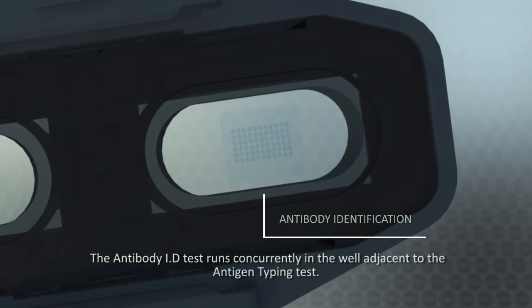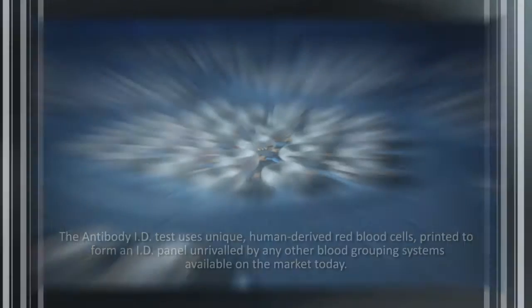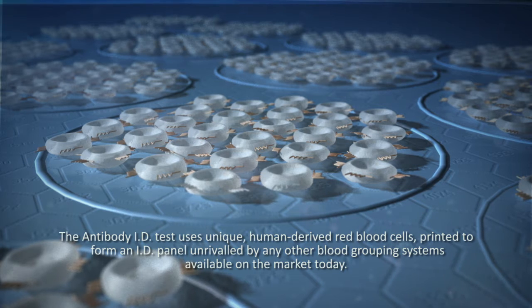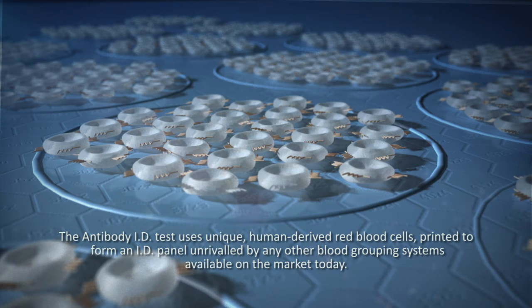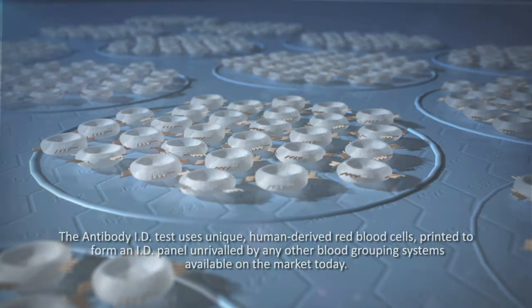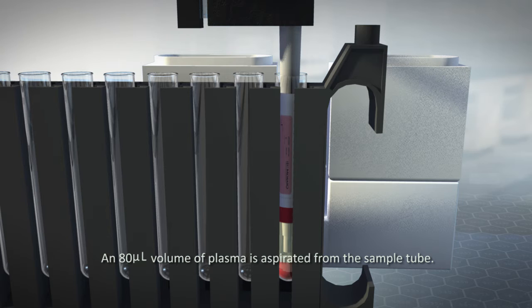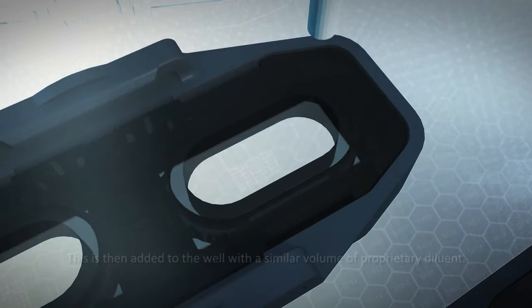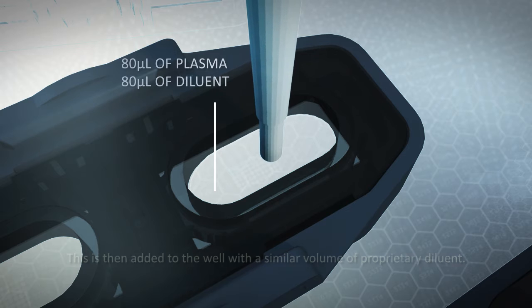The antibody ID test runs concurrently in the well, adjacent to the antigen typing test. The antibody ID test uses unique human-derived red blood cells printed to form an ID panel unrivaled by any other blood grouping systems available on the market today. An 80 microliter volume of plasma is aspirated from the sample tube. This is then added to the well with a similar volume of proprietary diluent.